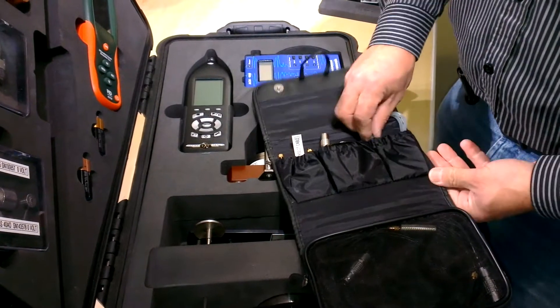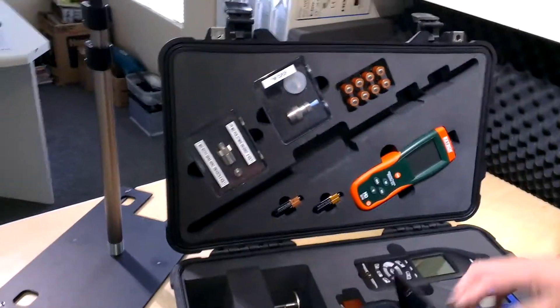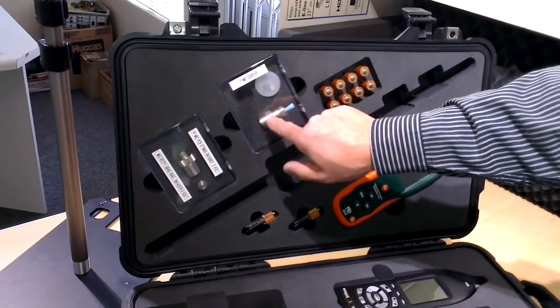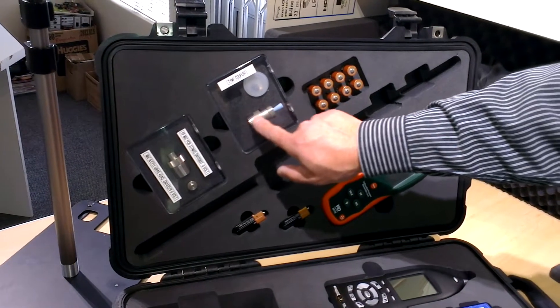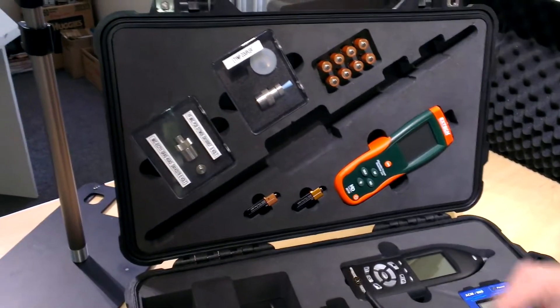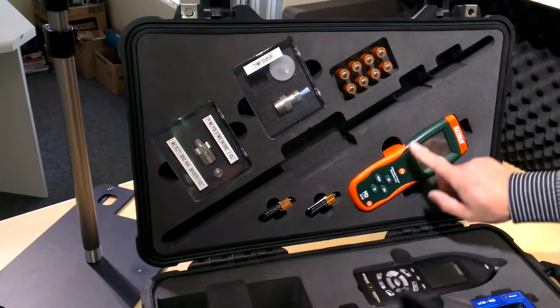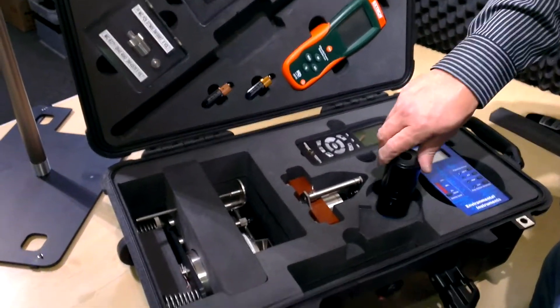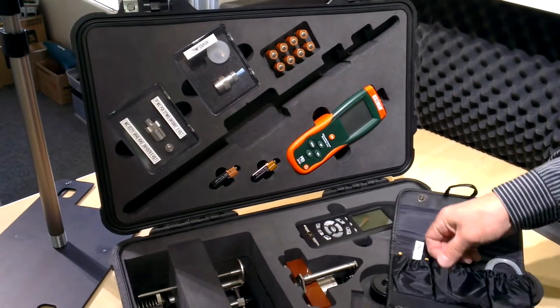Some piping for the manometer is stored here. Our 711 coupler is stored over there with the free field microphone. Our timp coupler for the timp calibration of ipsilateral measurements is there. A nice set of additional batteries is stored over there, along with some additional backup batteries. These are for this device and for the calibrator, which is also conveniently stored out of the way there.